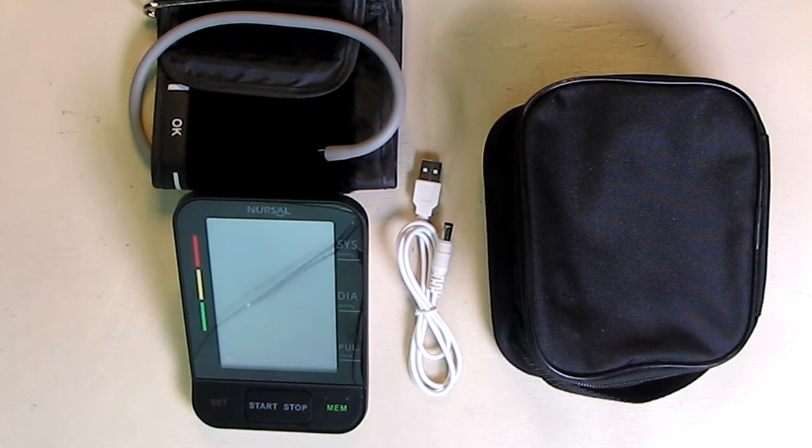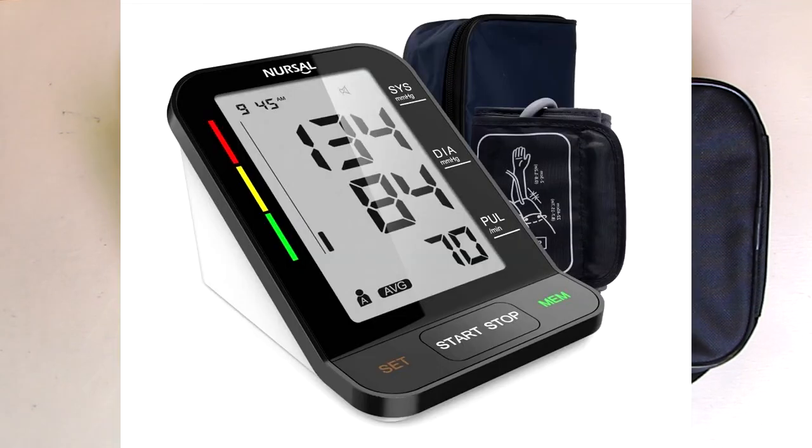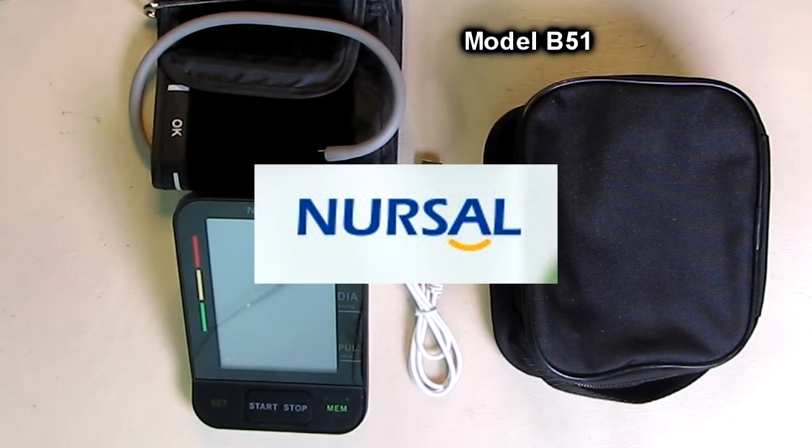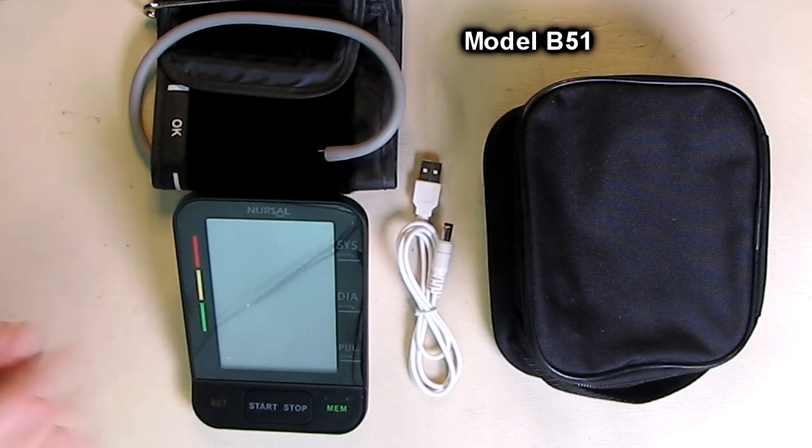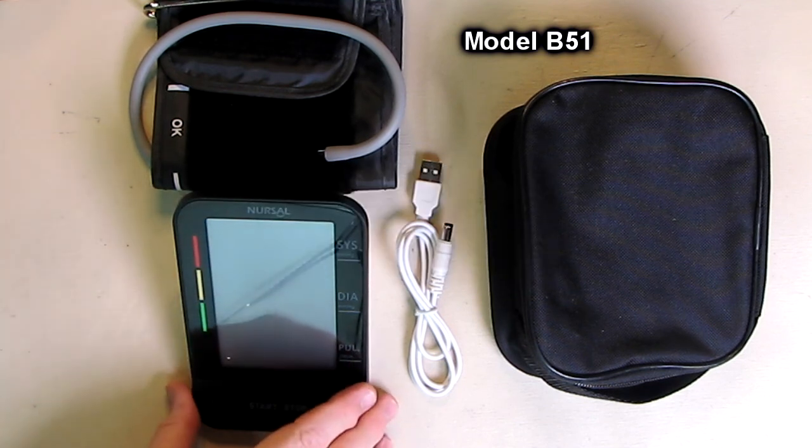Hello again, this is Robert Veach here. This is my video review of the NURSAL brand, N-U-R-S-A-L. This is their upper arm blood pressure monitor with a large LCD screen and two power sources.